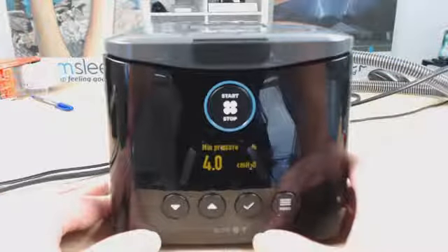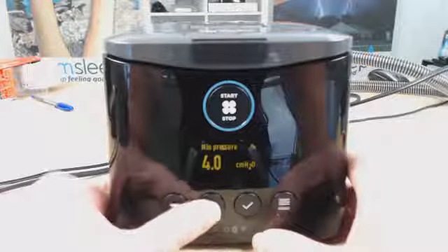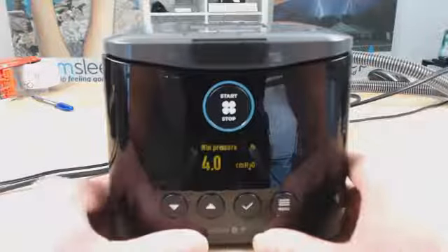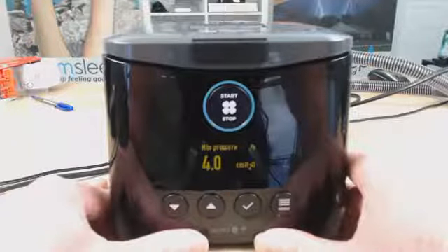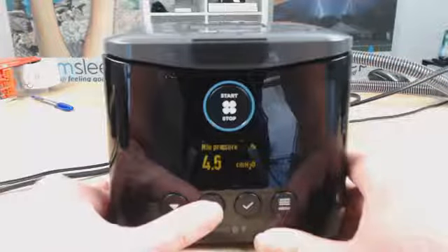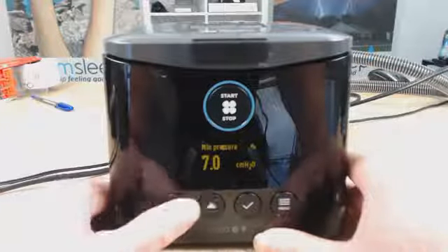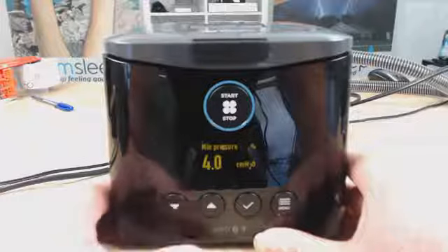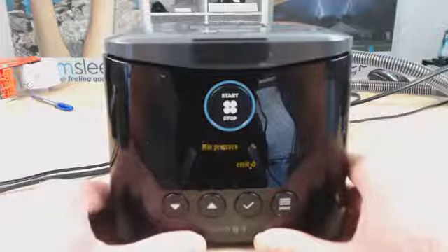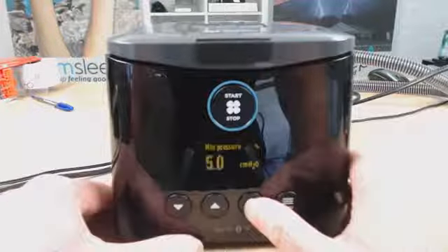Then we have the min pressure. This is the bottom limit of the pressure, and the 4 is the minimum that we can go, but we can increase that if we want to. So if you're finding that the therapy is a bit suffocating in the beginning, that you're not getting enough pressure, like not enough airflow, you might want to just bring that up a little bit. Most people have it somewhere between 4 and 7, but just find the pressure that you find most enjoyable, and you can change that to your liking. You want it so that it's nice and comfortable. Once you've got it where you want, I'm going to choose 5.